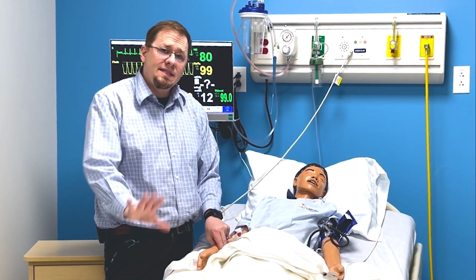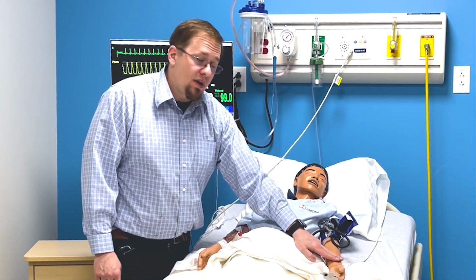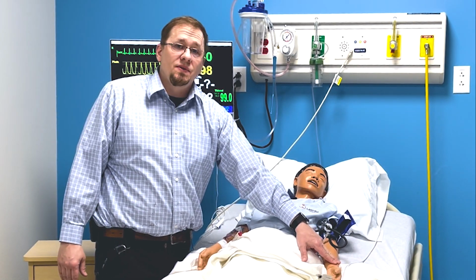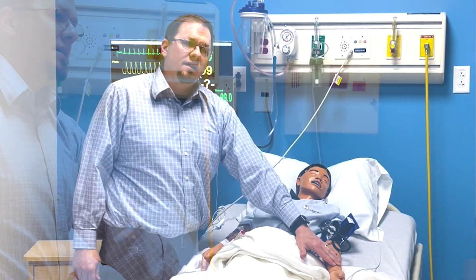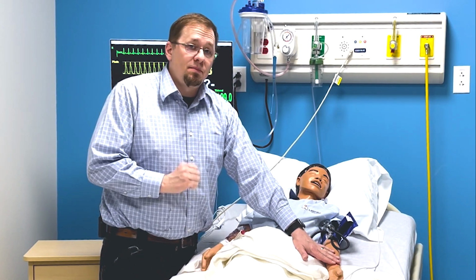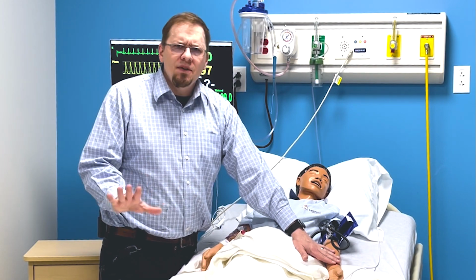That doesn't mean the patient's dead. That simply means this is just the IV arm. So if we go on to the left arm over here, you feel around for something squishy, press down, lighten up, and you should feel a pulse. Biggest thing I see people doing is they'll go like, "I can't feel a pulse." Okay, lighten your hand up, and you should feel it. The other thing is, you want to feel for a pulse for a full 10 seconds. If you do not feel a pulse, you're going to do some really awful things to this person, right? Give them their full 10 seconds.